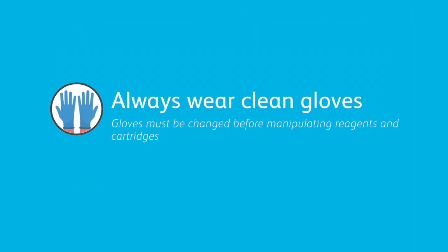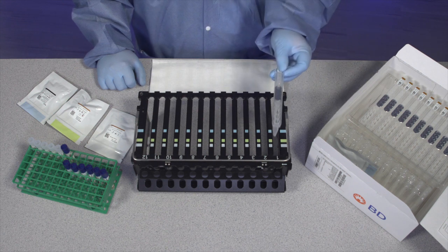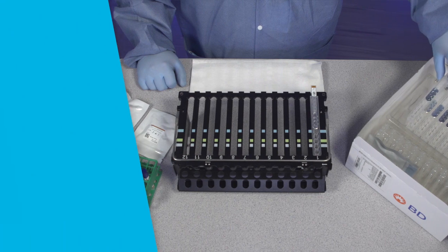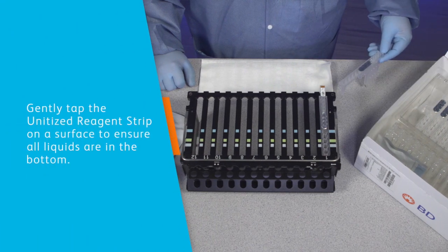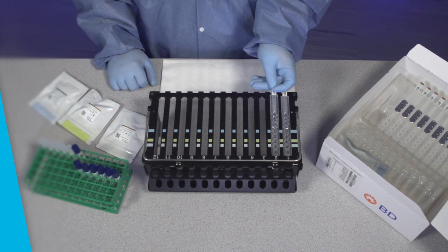Gloves must be changed before manipulating reagents and cartridges. Remove the required number of TNA unitized reagent strips from the BD-SARS CoV-2 reagents for BD-Max system kit. Gently tap each unitized reagent strip onto a hard surface to ensure that all the liquids are at the bottom of the tubes.